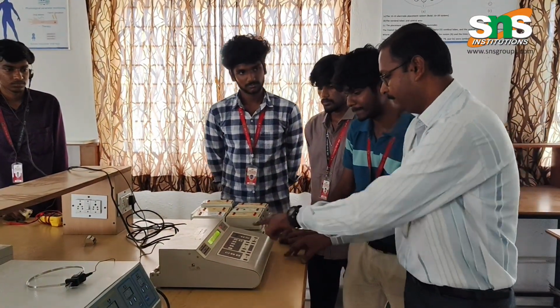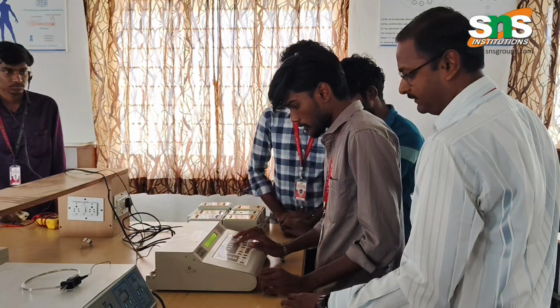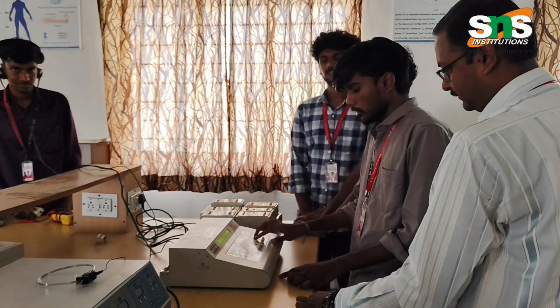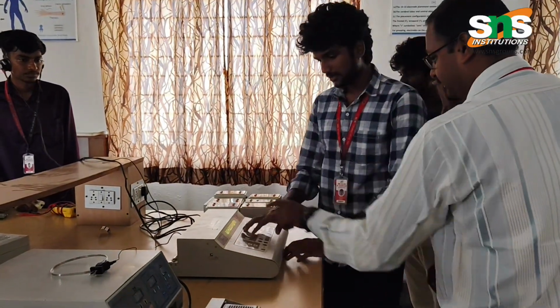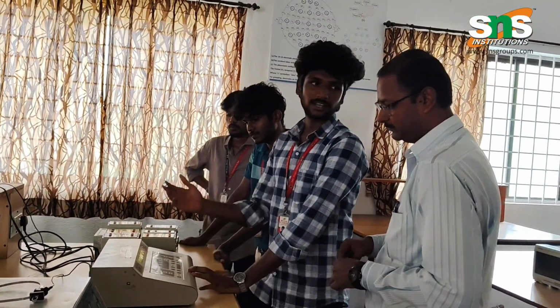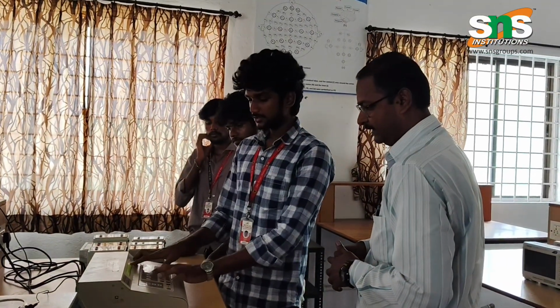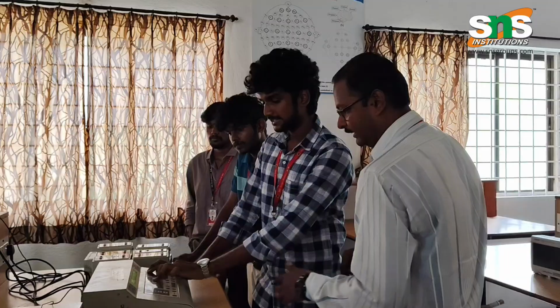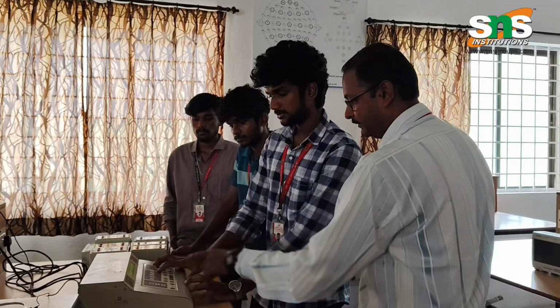Can you change the menu over here? Just press the menu button and tell us whatever you see. There are three types of tests here: air conduction test, bone conduction test, and so on. We can select the method we are using. Okay, now the next person. Press 1 to select air conduction. What is being observed here? After I press 1, we have the tone levels and ranges. We keep the frequencies in hertz, and for masking we can select left or right. We can change the rate and decibel ranges using these numbers and the menu options. If you want to come back, press menu again, and then you can adjust the things.